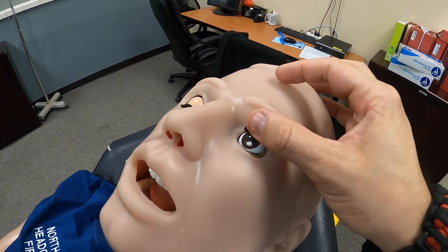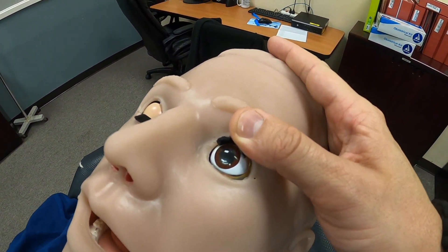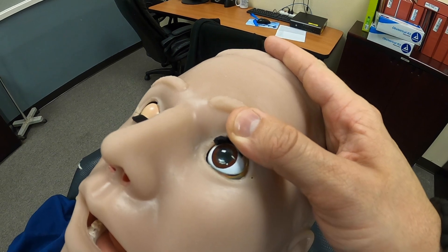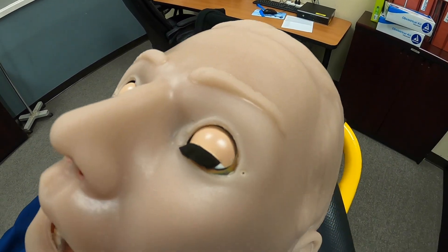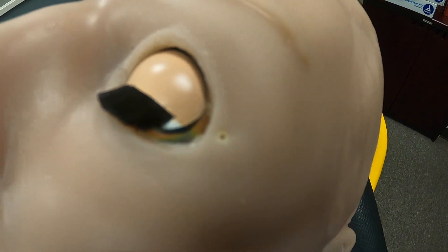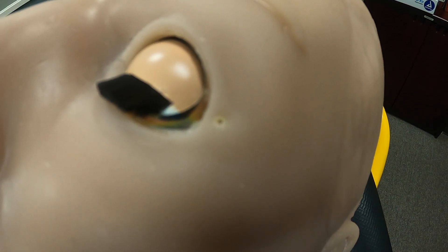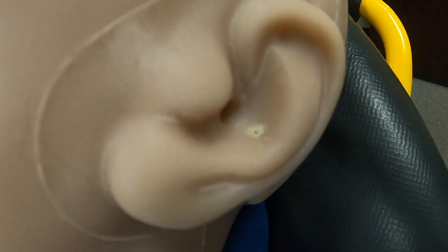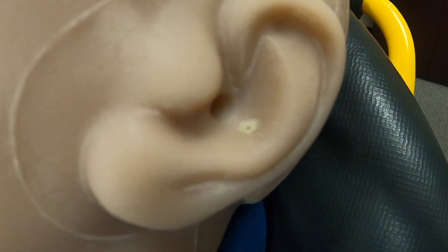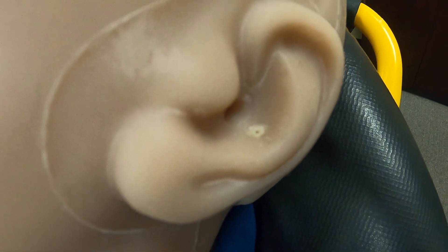Starting at the top, it has pupillary response — when a light is shone into the eyes it will actually constrict, and it can also dilate if we program it to. On the side of the eyes there are ports that, once we induct fluid, will actually produce tears depending on the scenario.